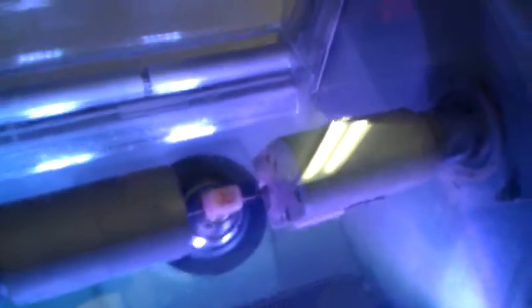So what's going on here? This block is made out of zirconia, which is an extremely strong kind of porcelain, much stronger than the early porcelains. And now when we make the crown, we have to use a diamond burr to cut it because the diamond is the only thing that can cut zirconia. This diamond cuts the outside of the crown, and the other diamond cuts the inside of the crown.